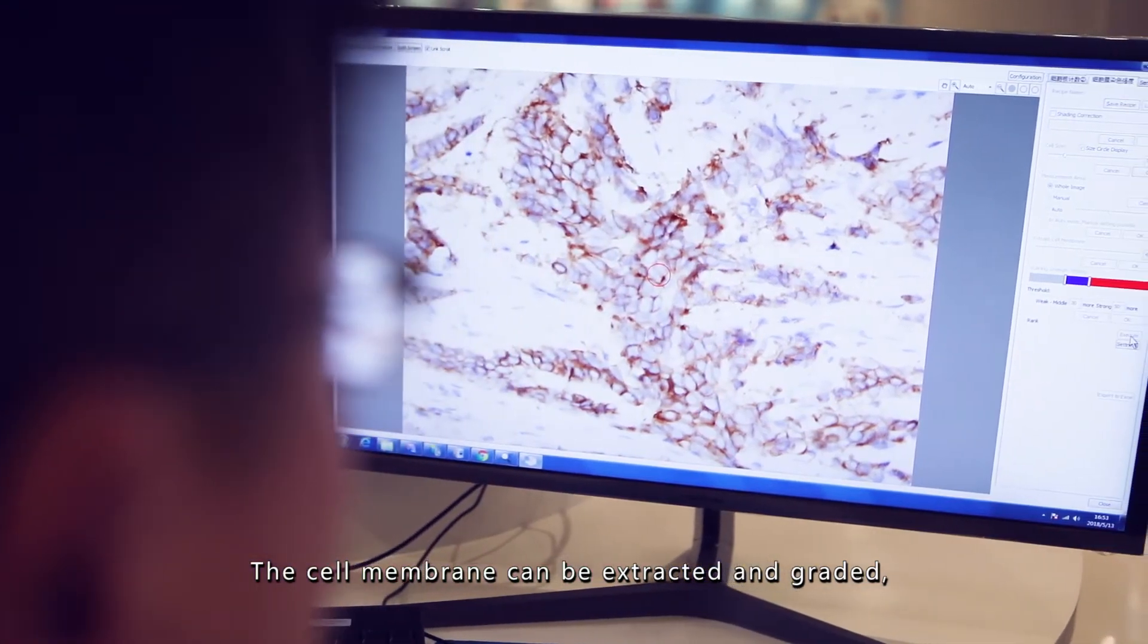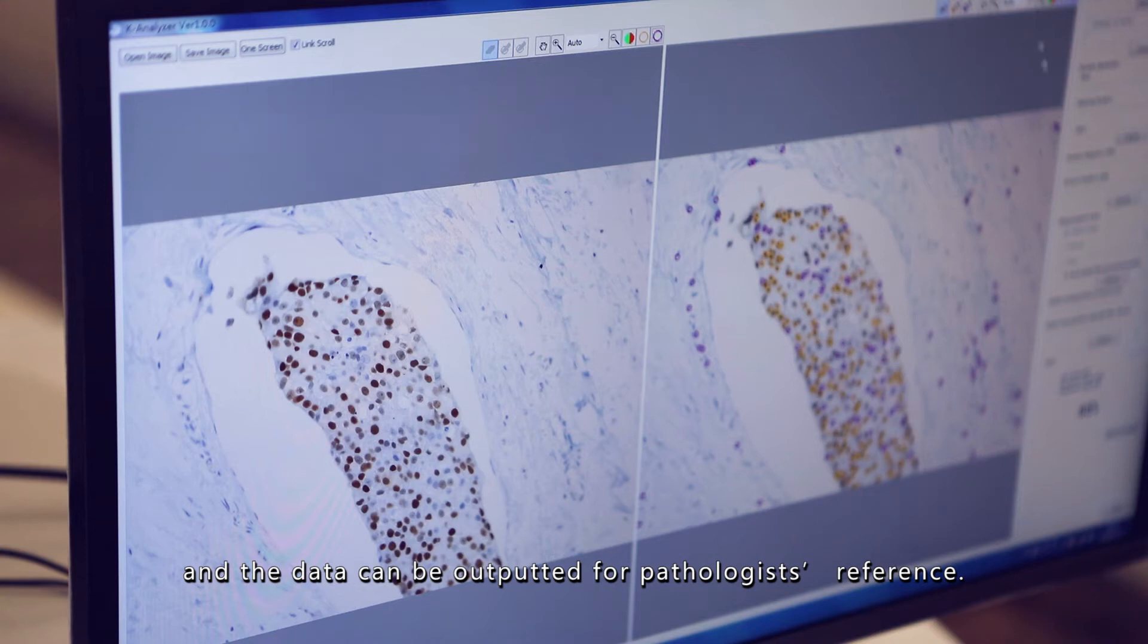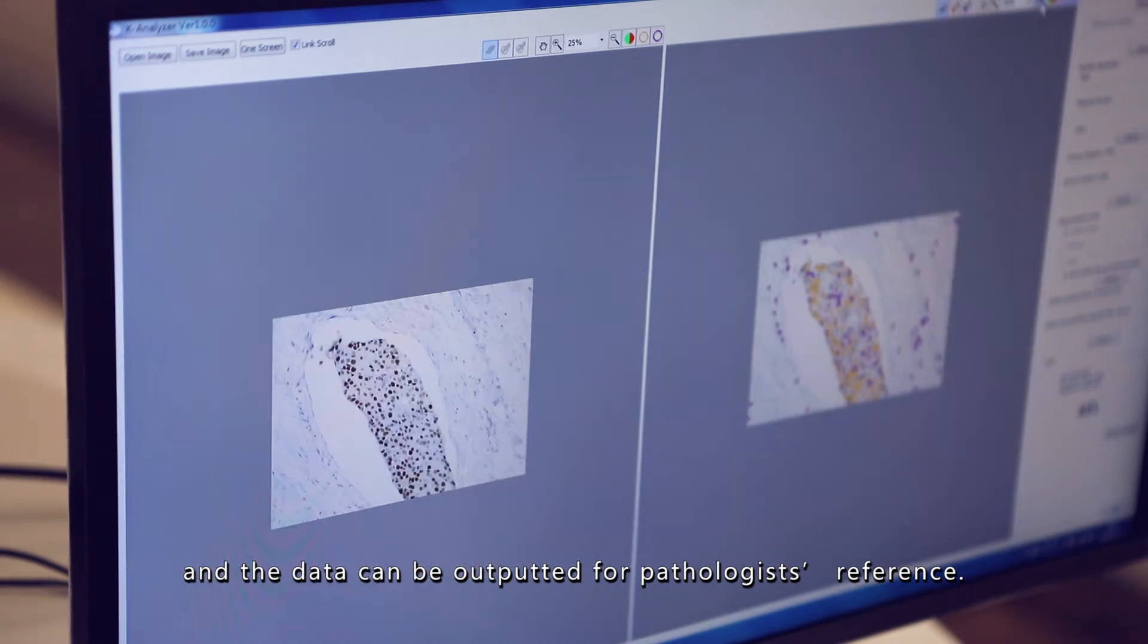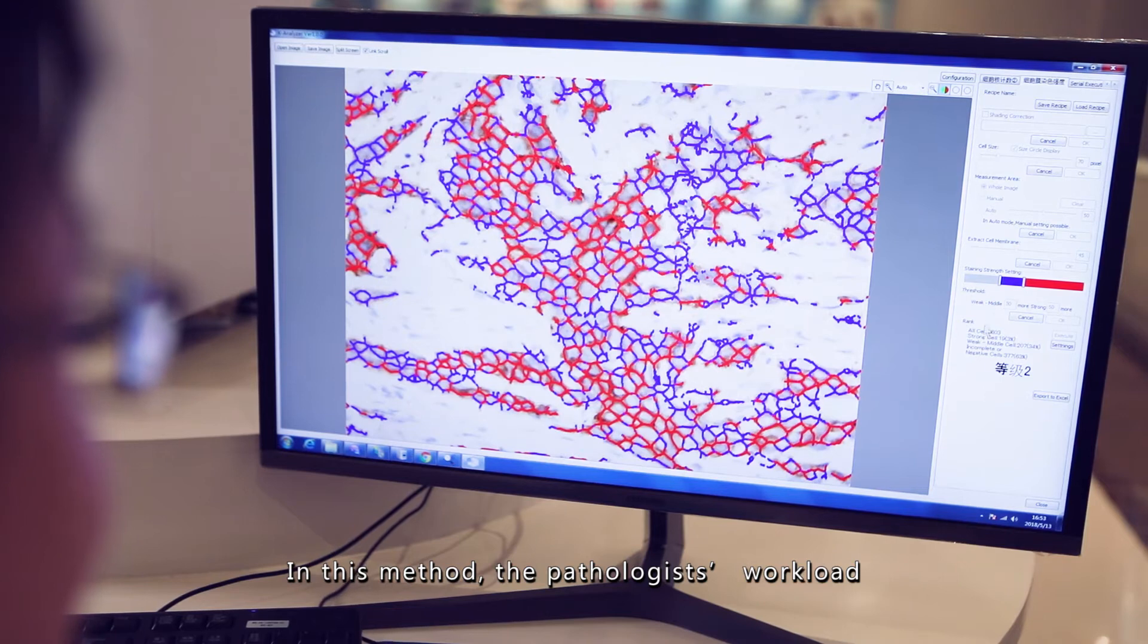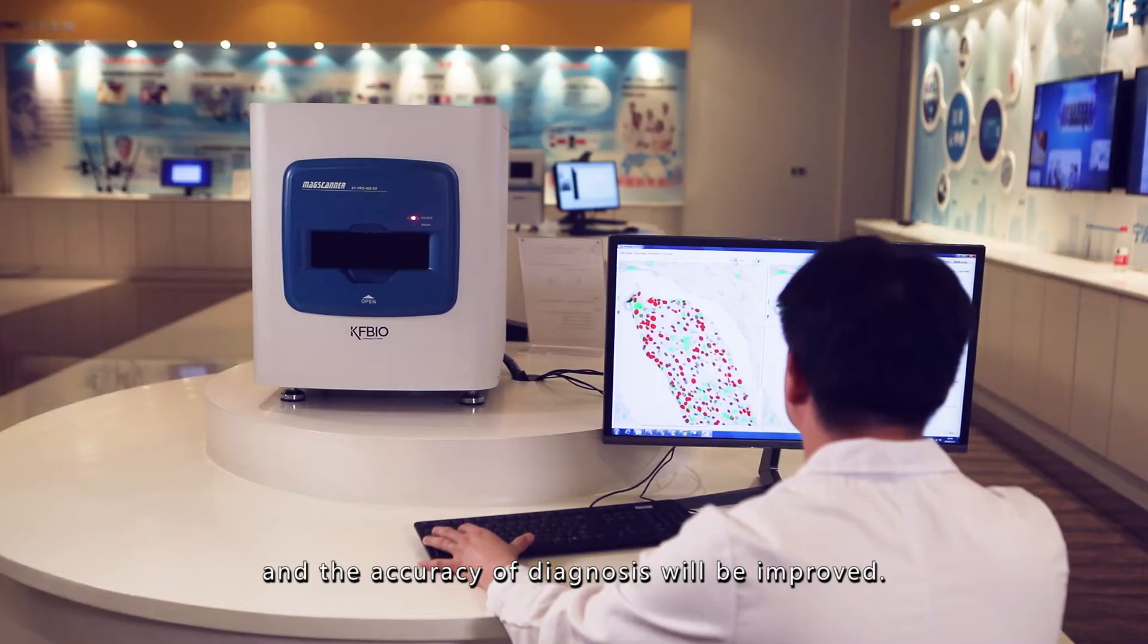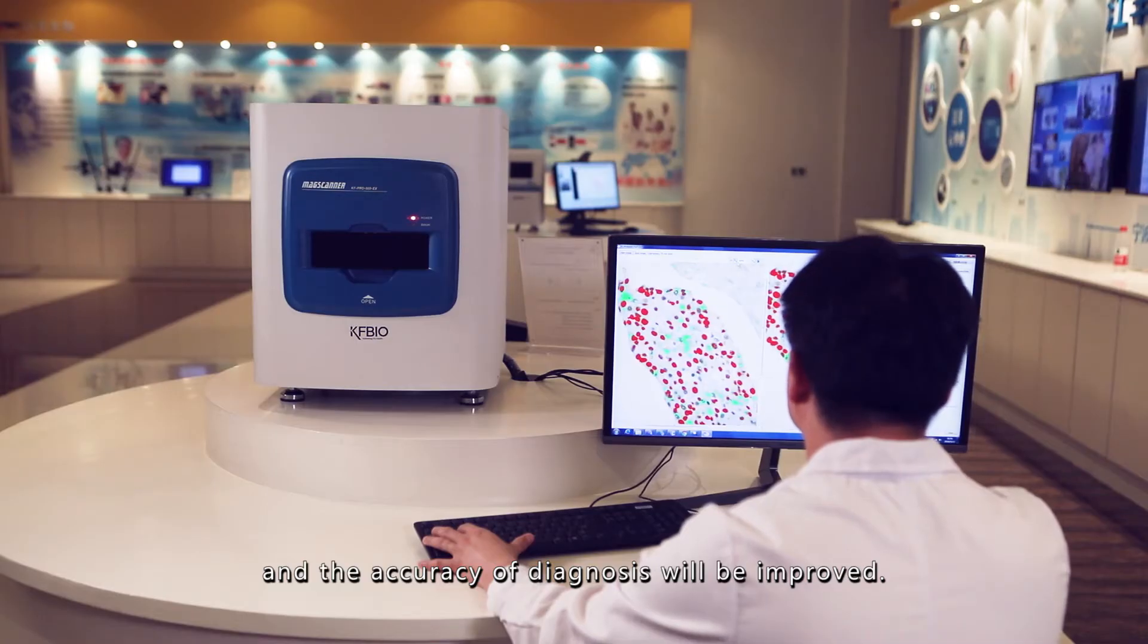The cell membrane can be extracted and graded, and the data can be outputted for pathologist's reference. In this method, the pathologist's workload can be effectively reduced, and the accuracy of diagnosis will be improved.